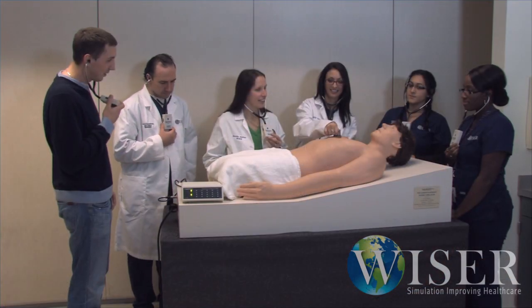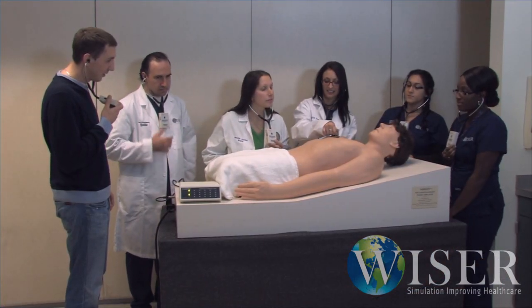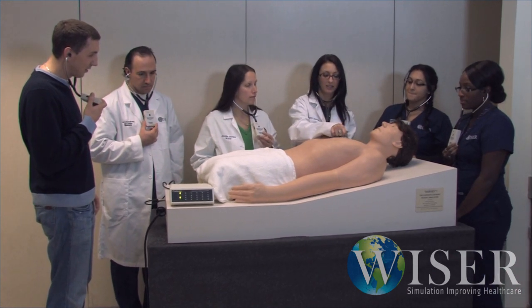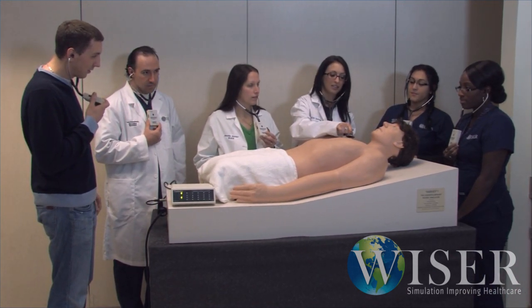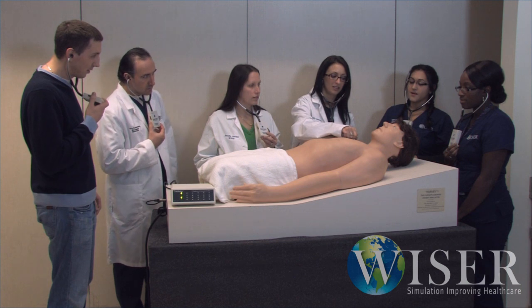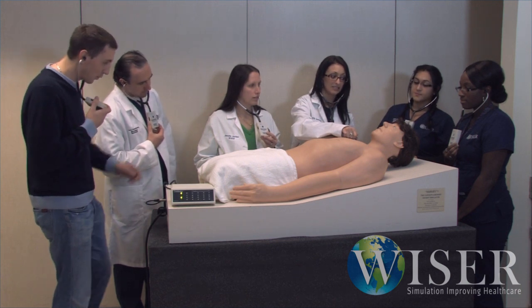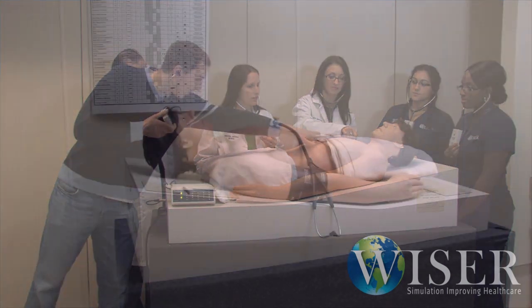Another way is to utilize the wireless stethoscope kit. This kit gives 10 learners a chance to listen in a group setting, but for instructors with much larger classes, this still can present a problem.